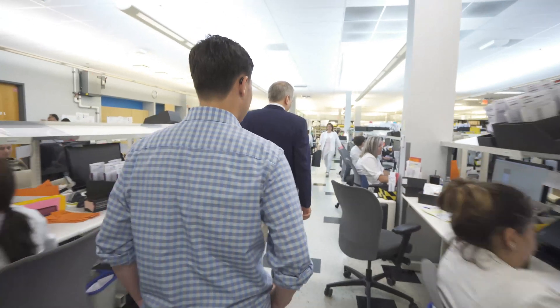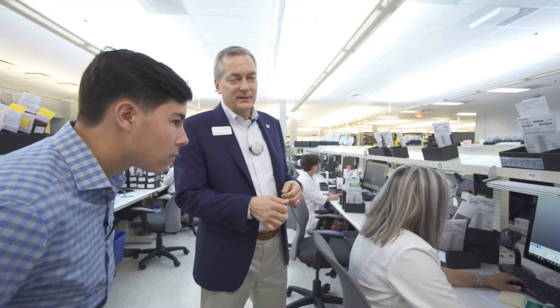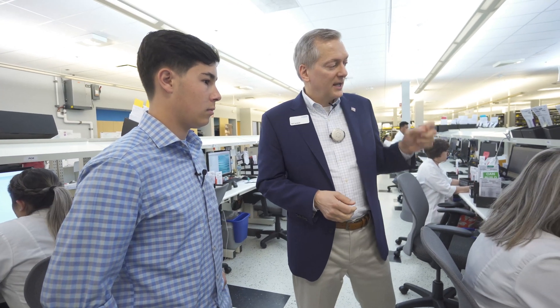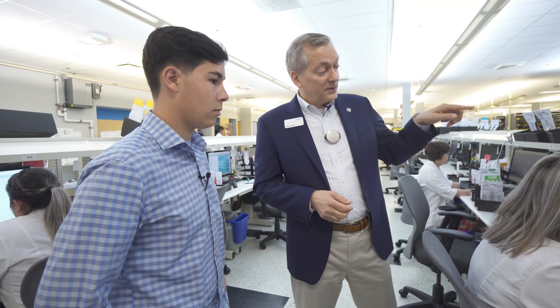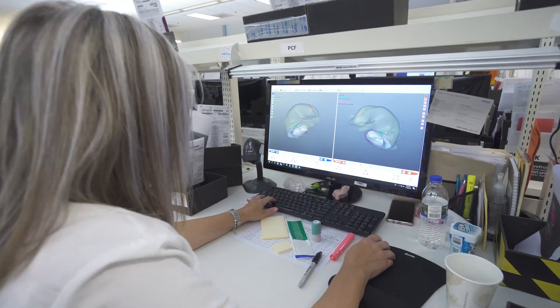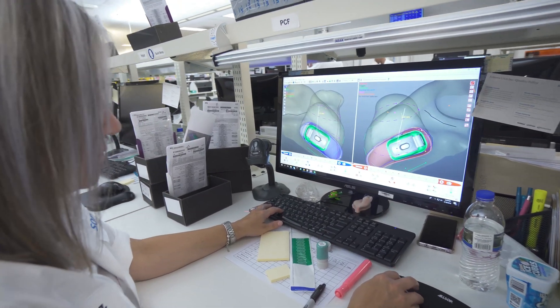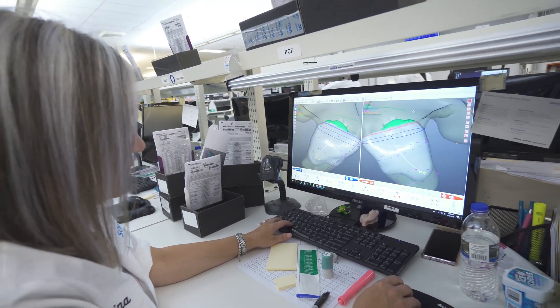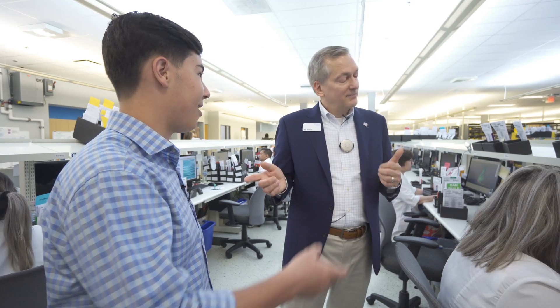The next step in the process is what we call modeling. The modeler is the architect of that particular hearing aid or ear mold — they're the ones making the custom item. They take the scan and all the order parameters and use 3D-based CAD software to design everything: placing all the electronic components, putting in the right venting. It takes incredible skill. Once this is done, the next step is actual 3D printing.